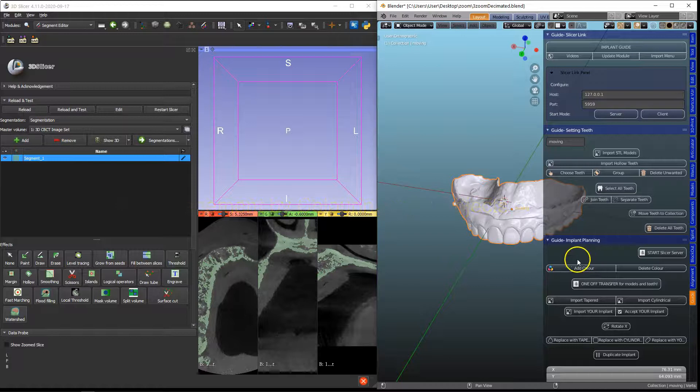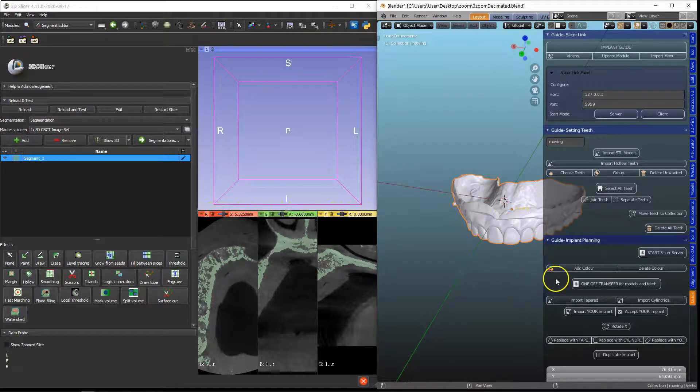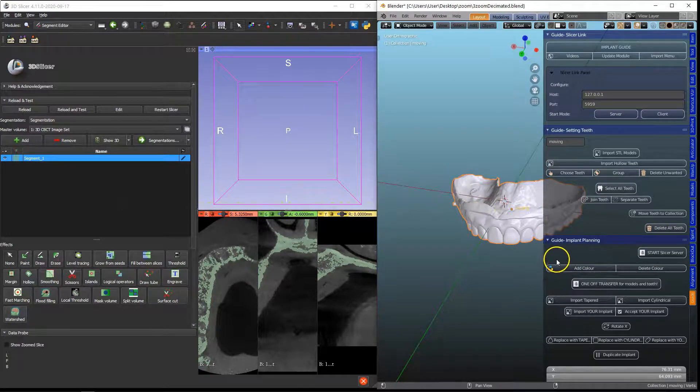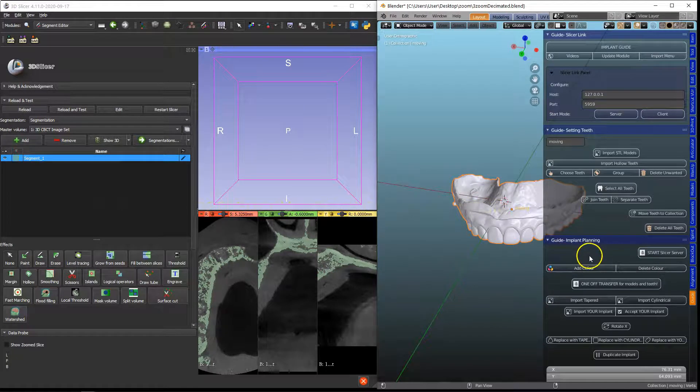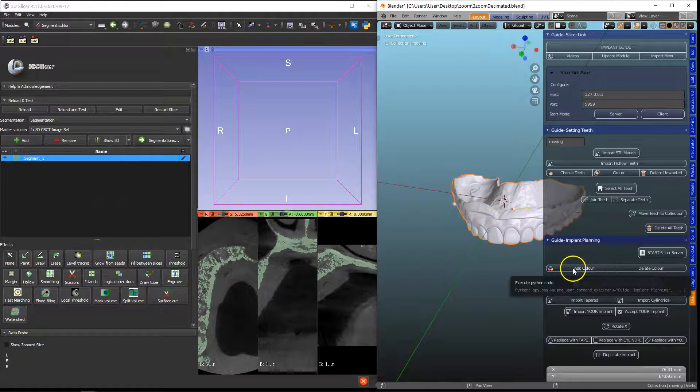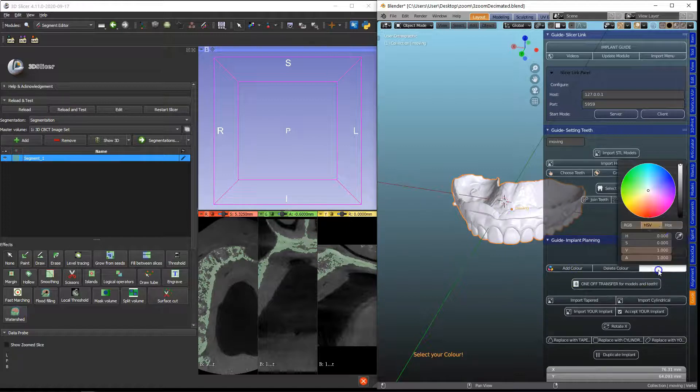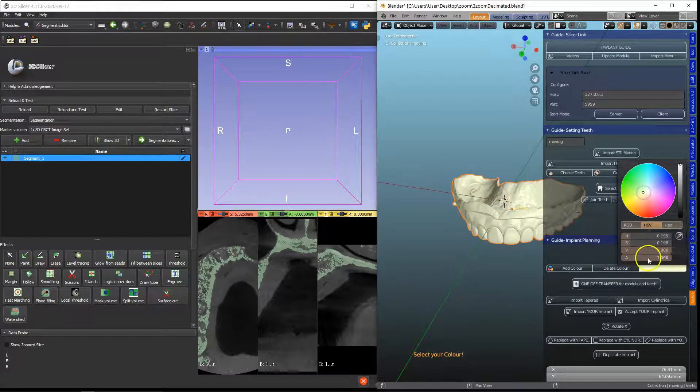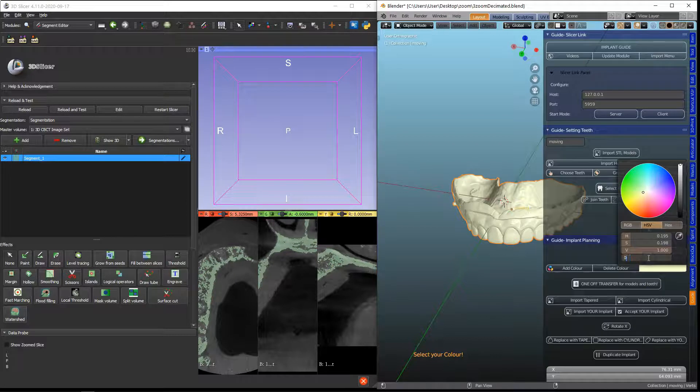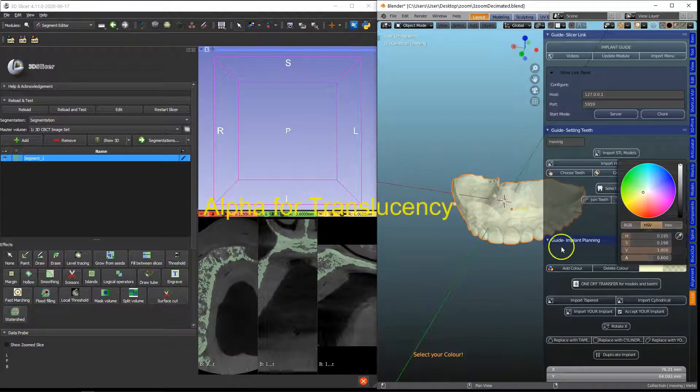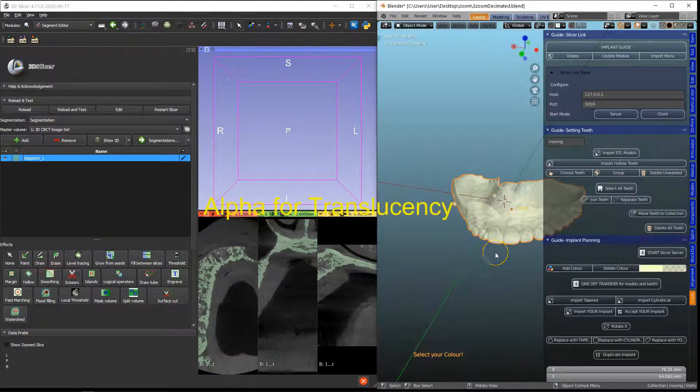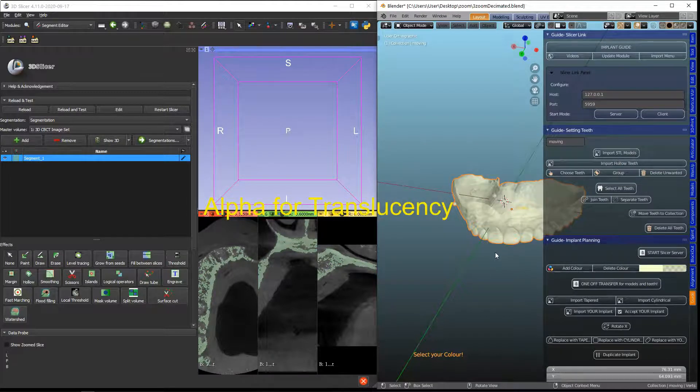We have them in the model designer and the wax up and they all do the same function. Add a color and then make the alpha value to something like 0.6 so we can see through it.